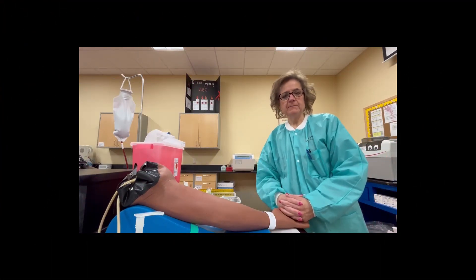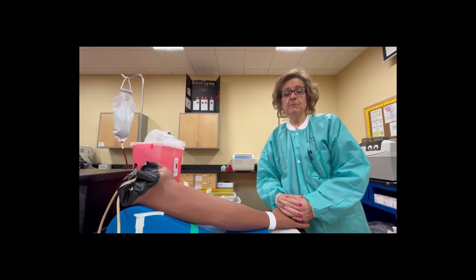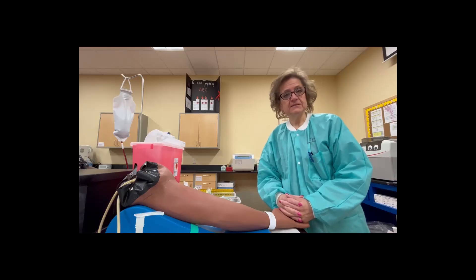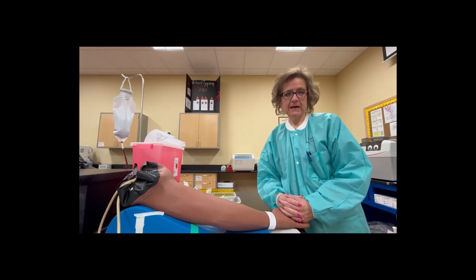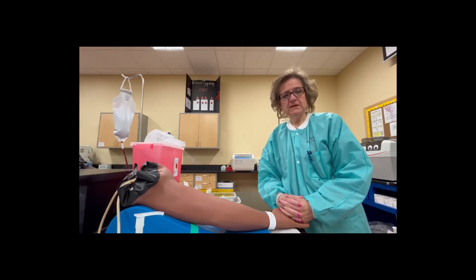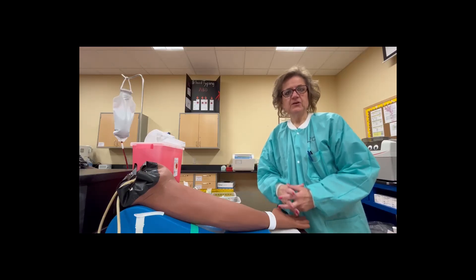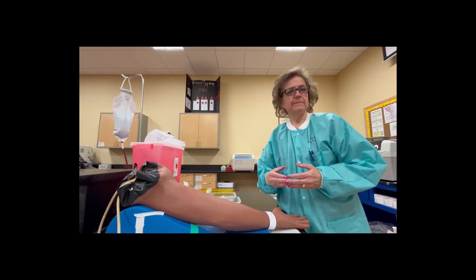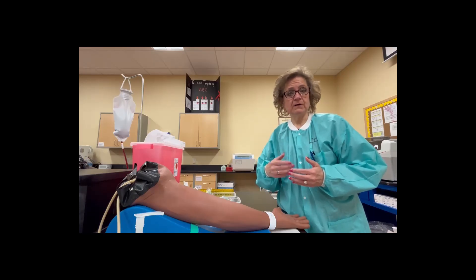The first part of any blood test — the most vital part — is going to be the phlebotomy itself. It is really important to make sure that you have the right specimen, the right patient, etc., otherwise whatever results you get out won't matter.